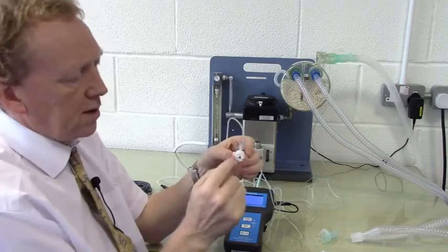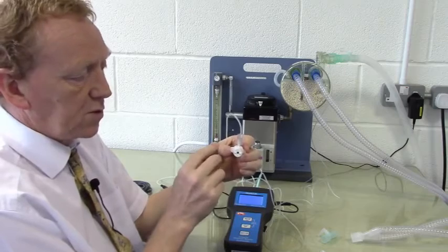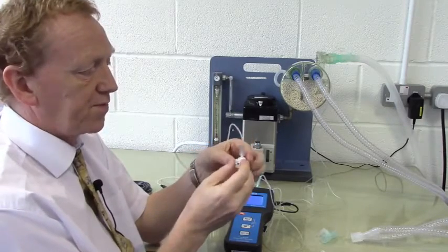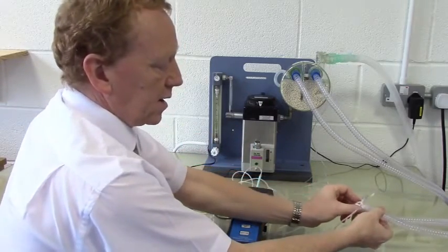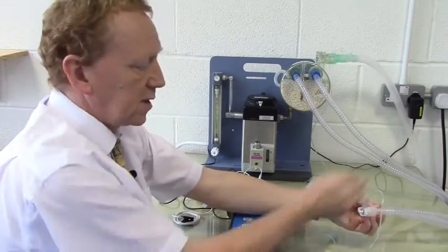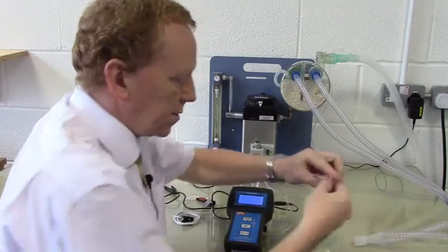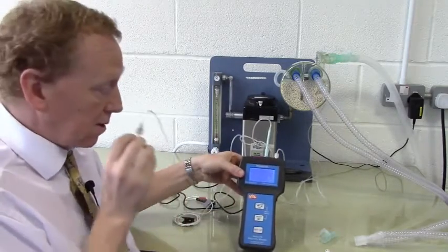You'll notice that this has a filled in area here. This is called a low dead space connector, and these are much more suitable for sampling capnographs in animals less than sort of a kilo, as the low dead space improves the quality of the waveform. Again, when used in circuit, this is placed at the end of the anaesthetic circuit like that, and your endotracheal tube will be placed here, sampling uphill into the animal and then off to the waste where it's removed. This setup provides very nice waveforms in small animals, and it is suitable for larger animals too.